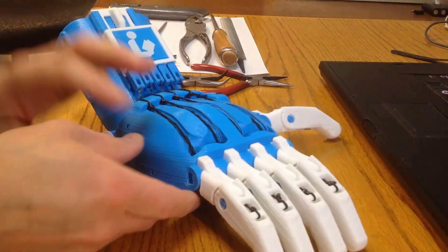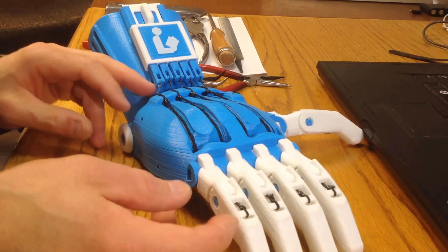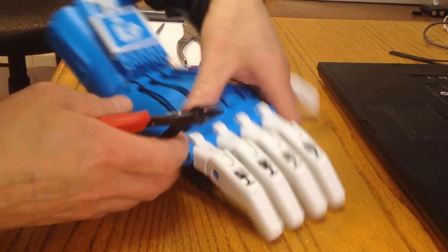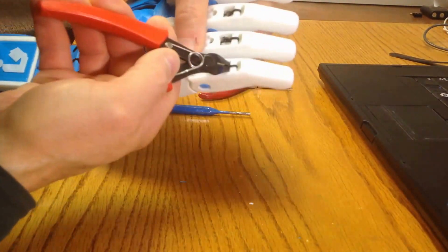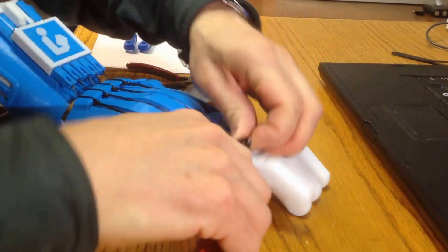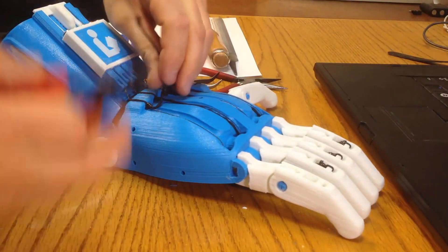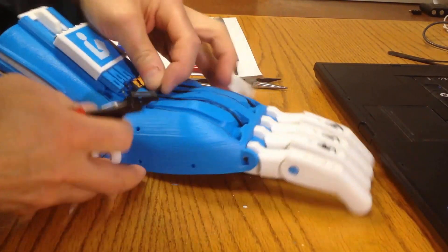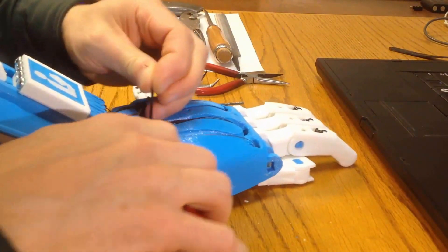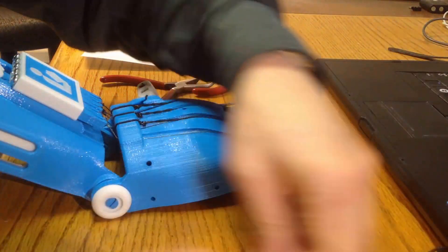At this point, I'm going to need to cut the elastic off. I'm going to see whether I can get away without taking the tendon line off, but I'm going to cut off the elastic — I'll cut it off from the end here. Pity, because that was a beautifully tied and sealed knot. Be very careful: you'll notice that you've got the tendon line underneath and the elastic on the top. Be careful you don't cut the tendon by mistake. And that's the elastic removed.